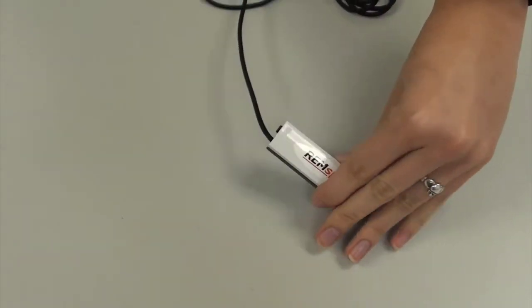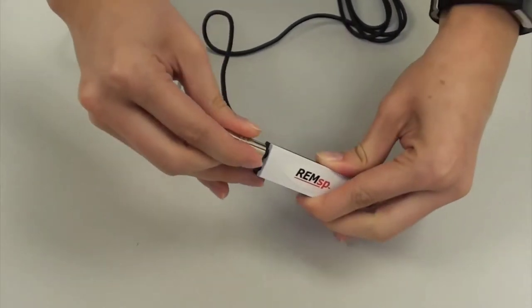For the REM SP, plug the button receiver into the speaker port located on the base of the hardware.